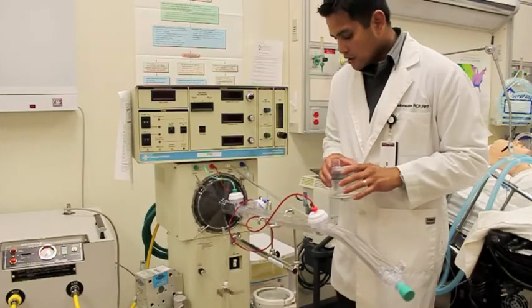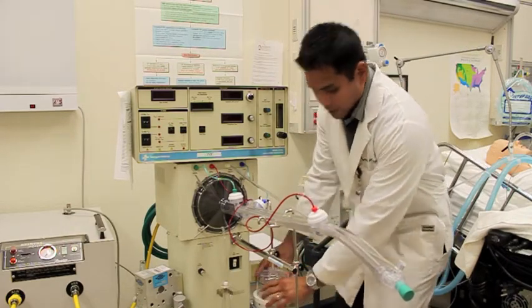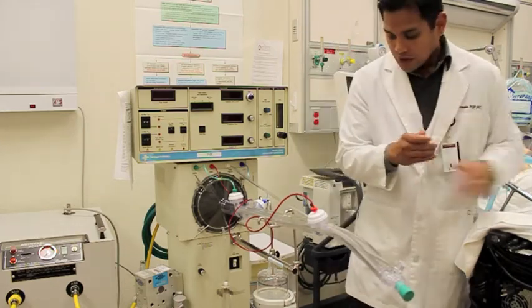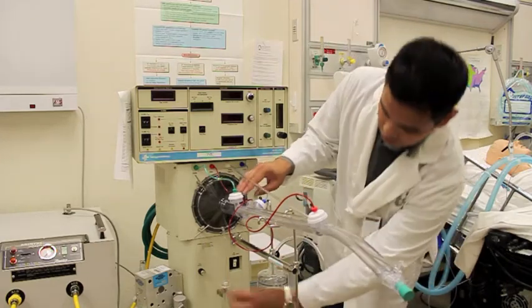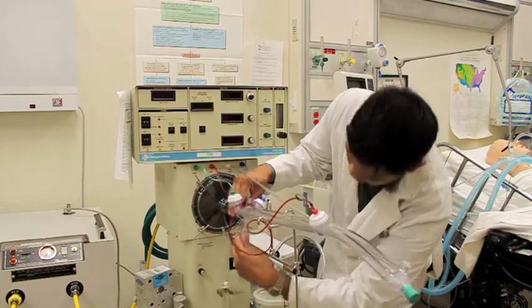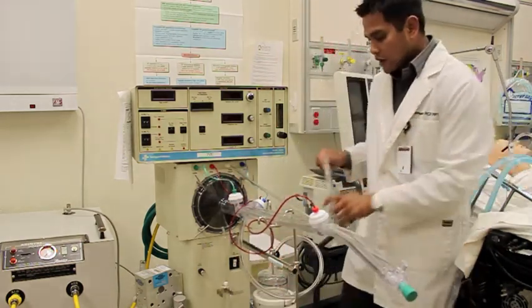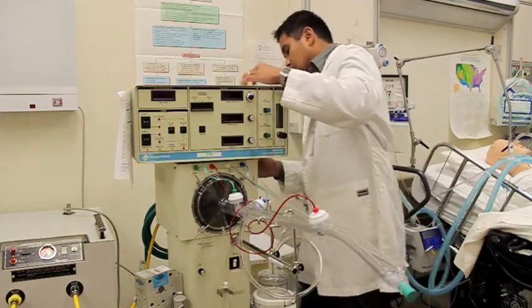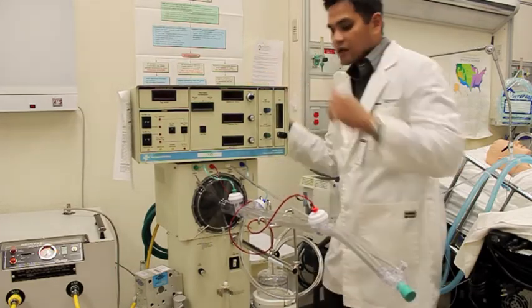Okay, next I want to connect my circuit to the humidifier so that the breaths that we are going to deliver are going to be humidified. Okay, so first thing is I'm going to connect the humidifier to the circuit, to our rigid circuit, and that is a little connection underneath the rigid circuit itself, connected to the humidifier, and the humidifier will connect to the gas source of the oscillator in the back. Okay, it's the only connection back here, so again, very hard to make a mistake here as well.